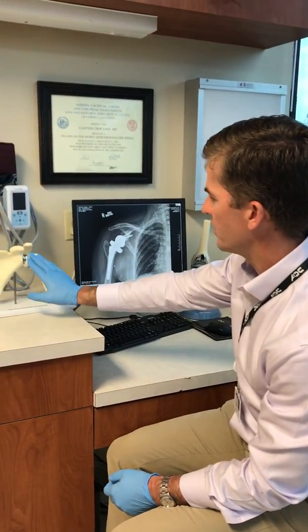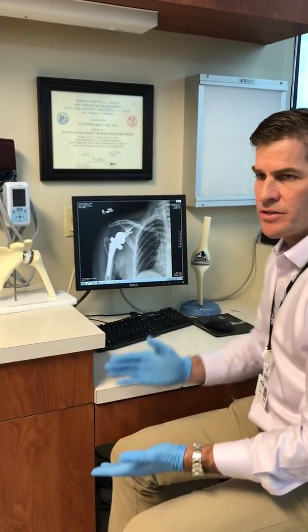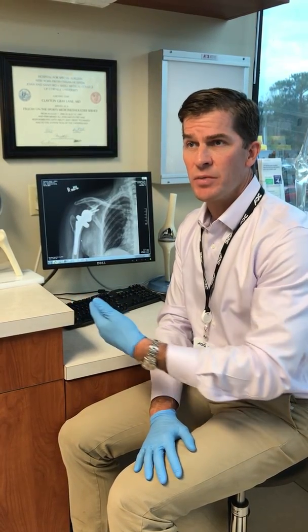What you're looking at is this same model flipped over. This is a great example of what a reverse shoulder arthroplasty can do for somebody that fell and had a fracture. We do use it for arthritis, but in this case it was used very well for a fracture.